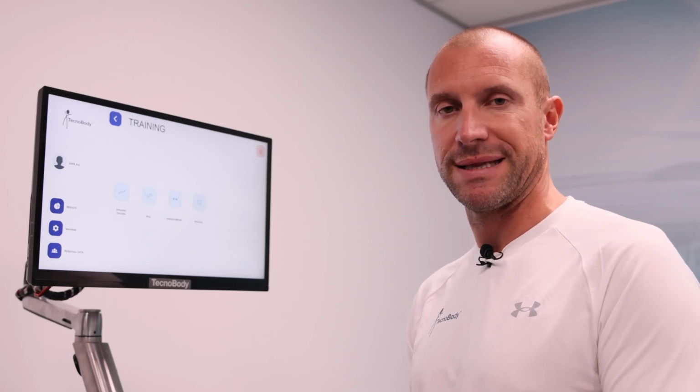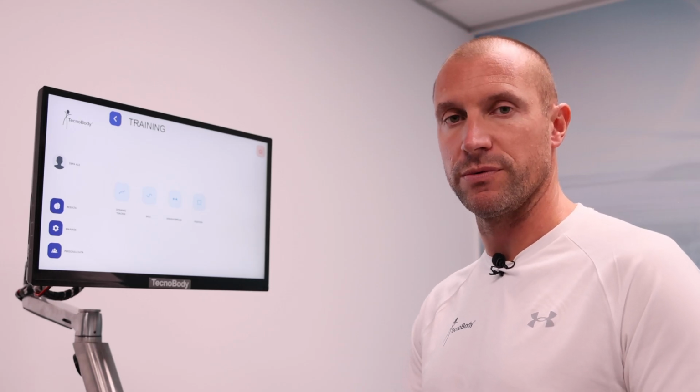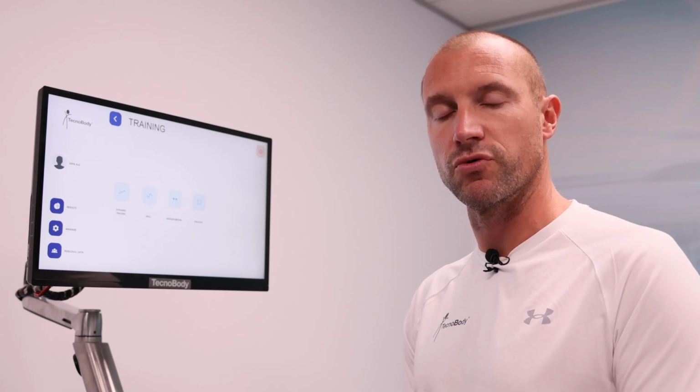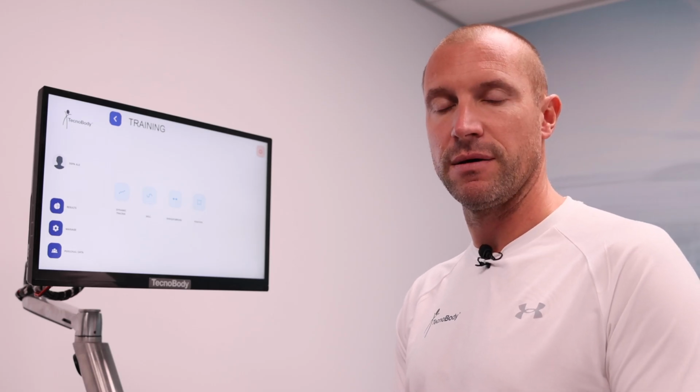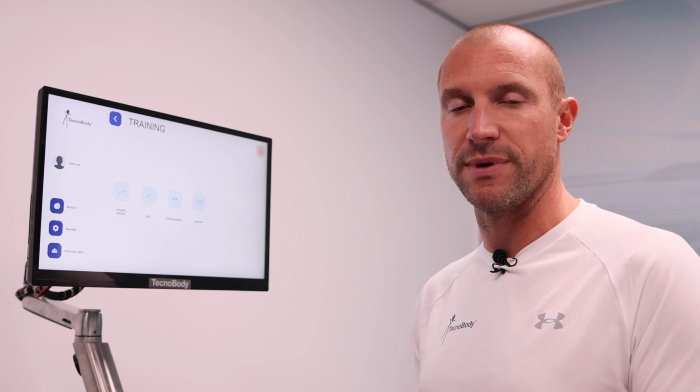So in static, dynamic and dynamic for the trunk. The difference will be in the way that you're going to develop this kind of training. So in the dynamic mode, we are asked to have more control about dynamic balance with the possibility to set different levels of instability.